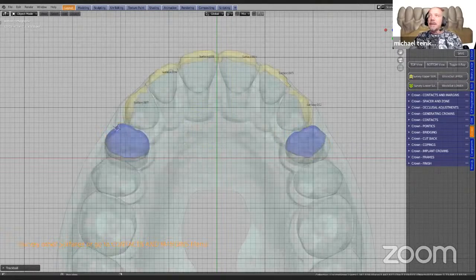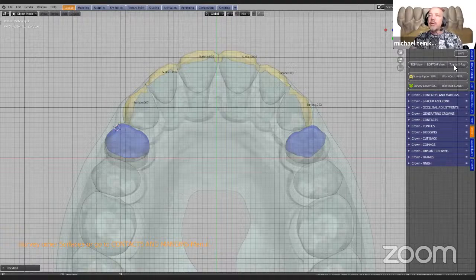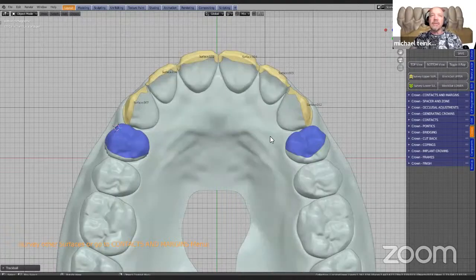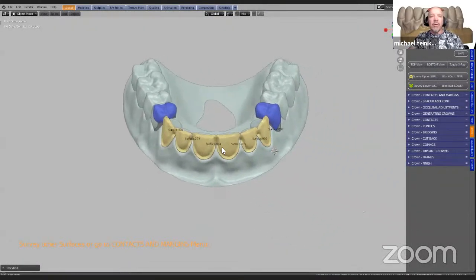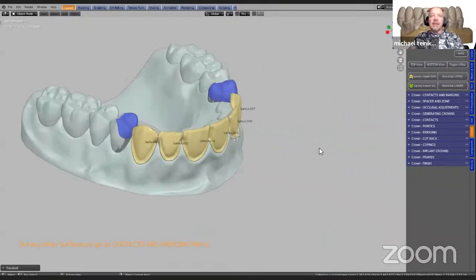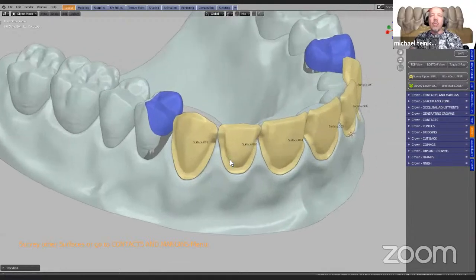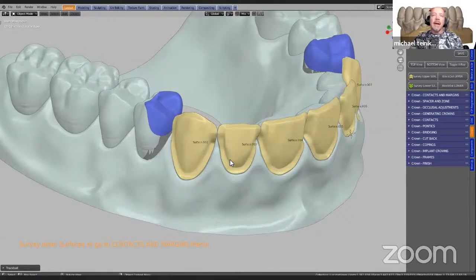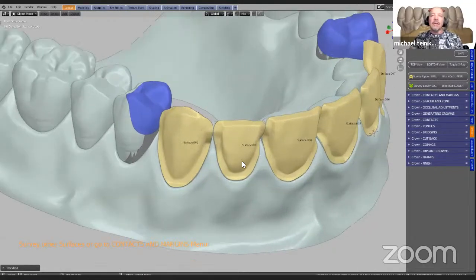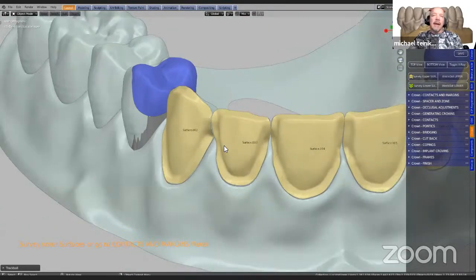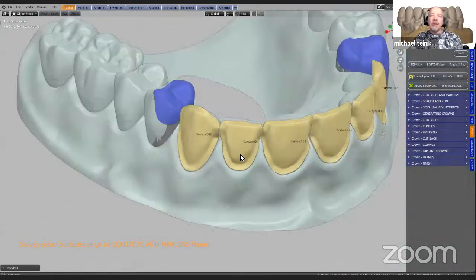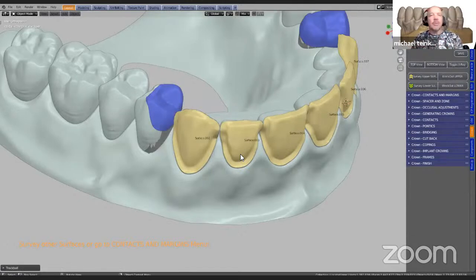We are working in transparent mode — we can toggle in and out of it. The next thing we need to do is take these veneers and do them one at a time, because they are very close together — in fact they are touching here. If you've got a bridge, for example, and they don't touch, we can do it in one go.